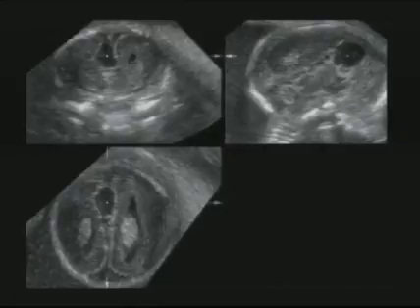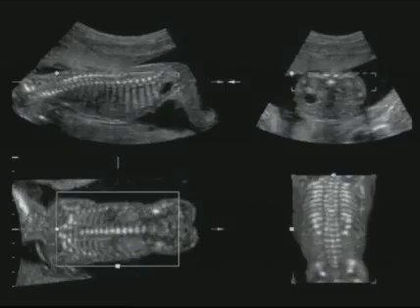And that is in the reconstructed view that we cannot provide unless we take a volume and reconstruct it. And this is one last example. In this case, we're in the skeletal mode. As you know, we have lots of different modes that we can display. And here we're showing the skeleton, much like the case that I showed you where the rib was missing. And this enables us to display any view within the volume of the spine.